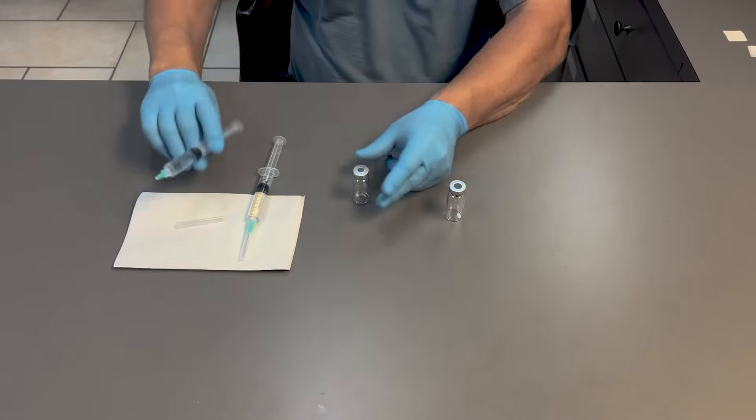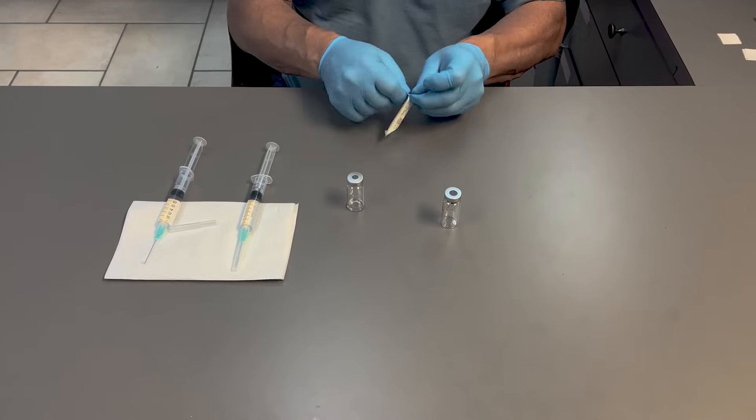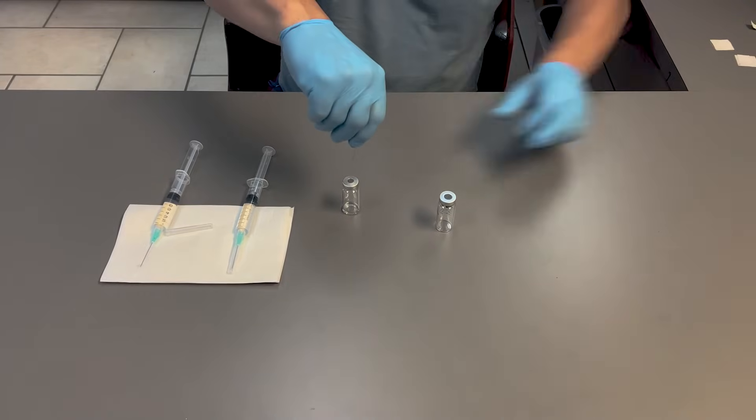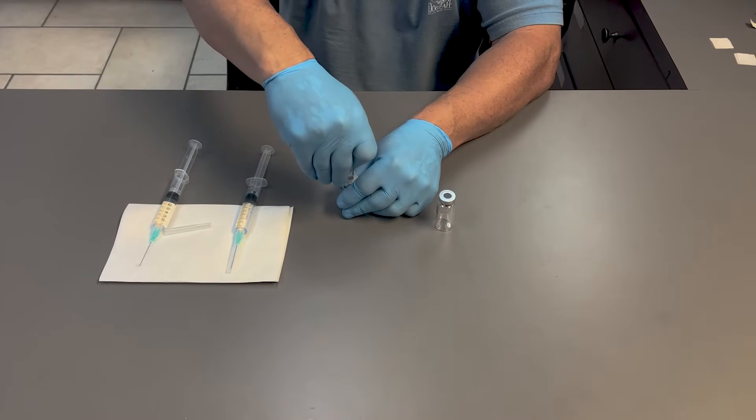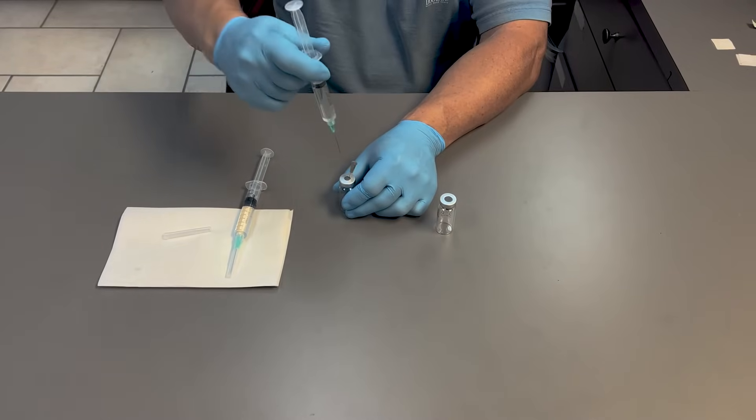So really to fill this vial efficiently, you would have to vent it with another needle so that the air pressure inside the vial can escape.